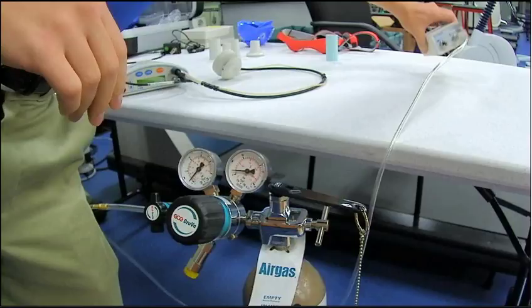Hi guys, here's the gas calibration video. Before I press play, I do want to explain my methods behind what I'm doing right now.